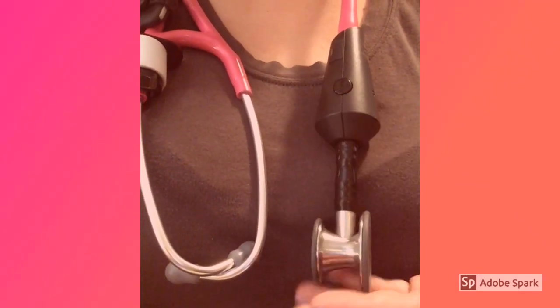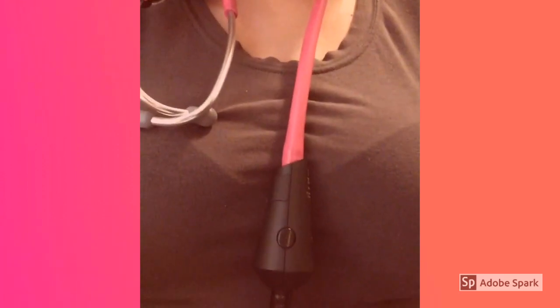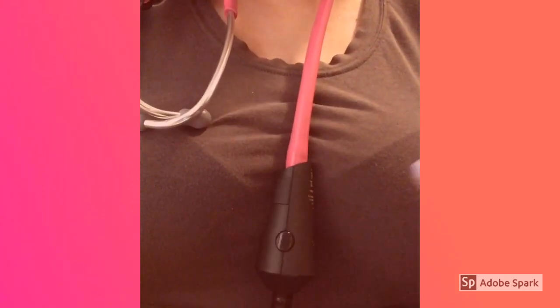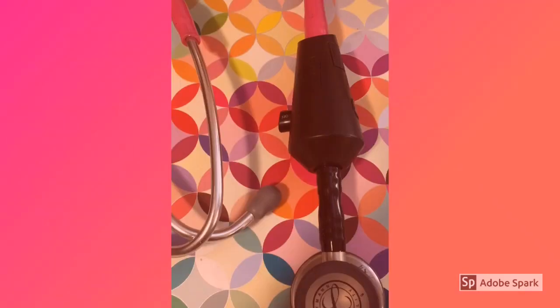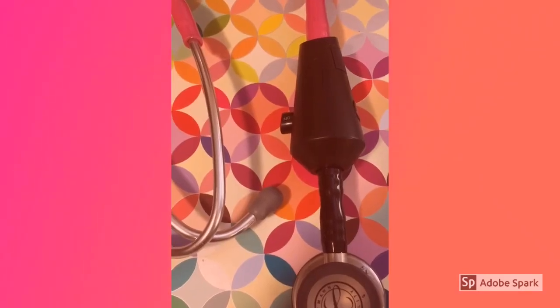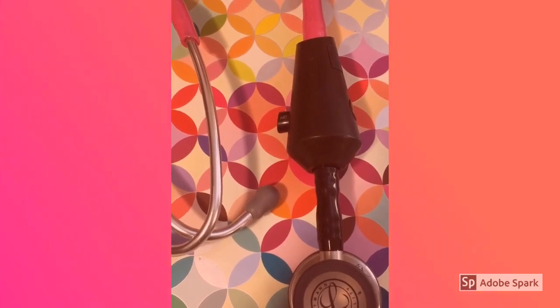As far as the weight goes, I don't really find it to be a problem. It does add a little weight, but what does bother me is as the shift goes on, the stethoscope shifts out of position. And this is not where you want people to be looking during your shift. It's annoying, but it's not a deal breaker for me — this device works so well I'm willing to overlook that.